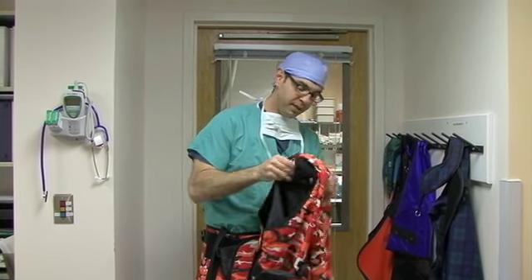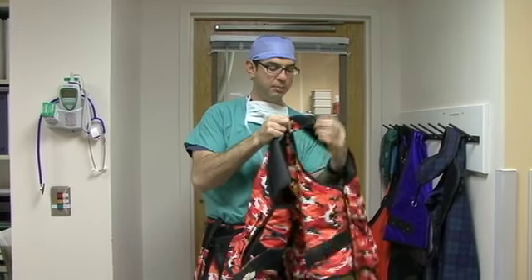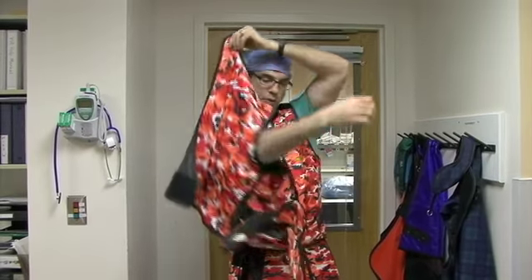The next step is to put on the vest. The vest can be complicated to put on. The first step is to take your left hand and put it through the armhole and bring it up to your shoulder. Then, with your left hand, you'll grab the Velcro tab that is on the right shoulder part of the vest, bring it around your head, and secure it down.